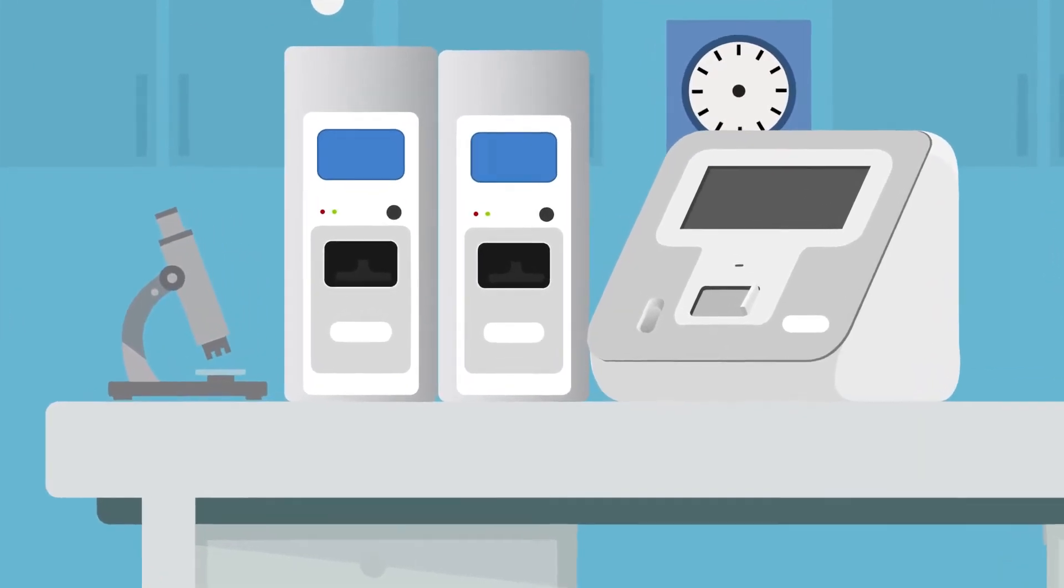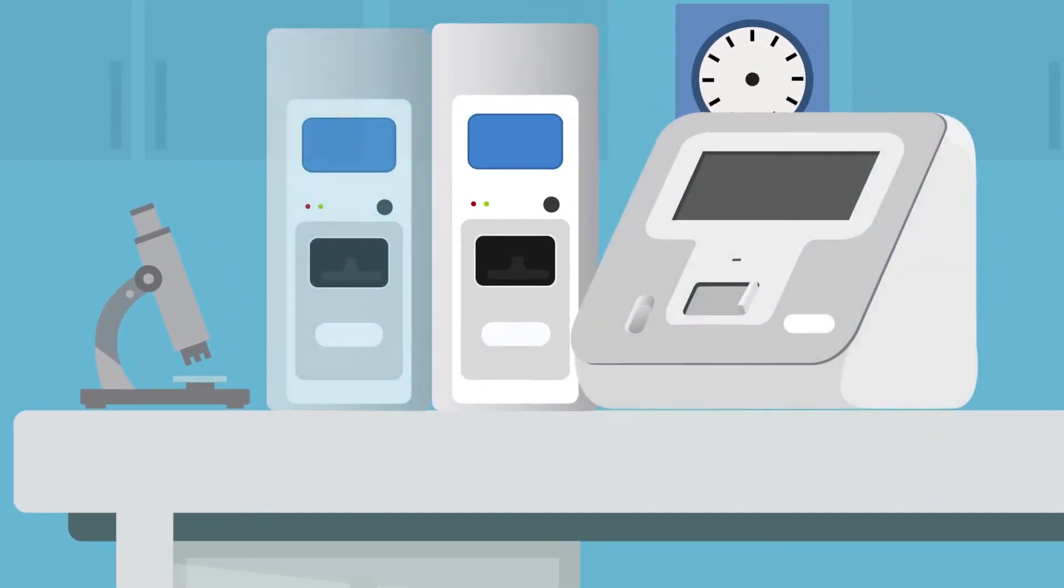The system consists of two components: the Verigene Reader and the Verigene Processor SP.